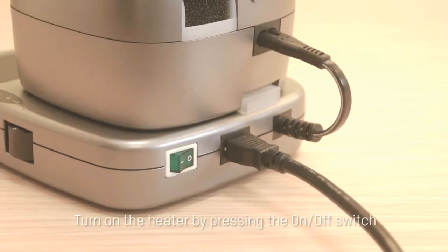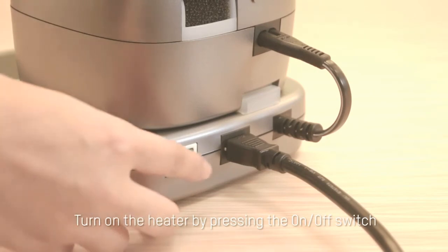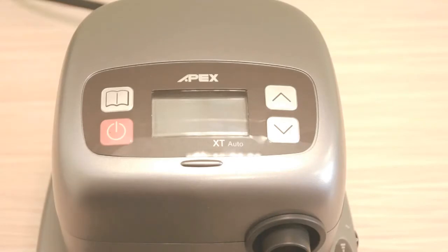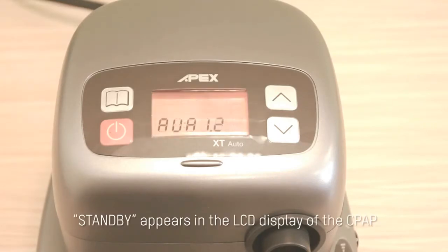Daily use. Turn on the heater by pressing the on-off switch on the back of the heater platform. Standby appears in the LCD display of the CPAP.